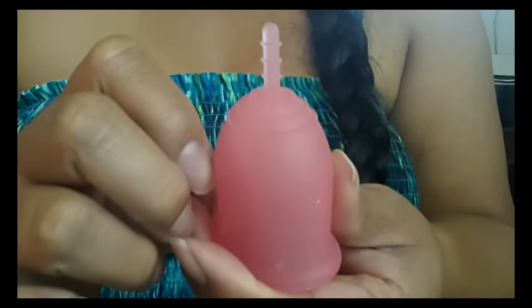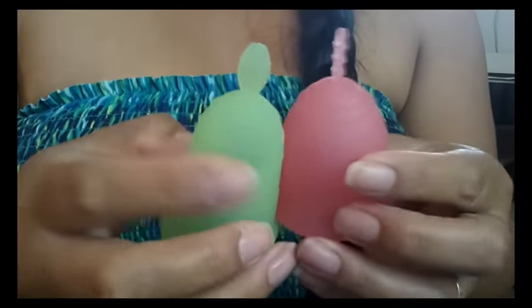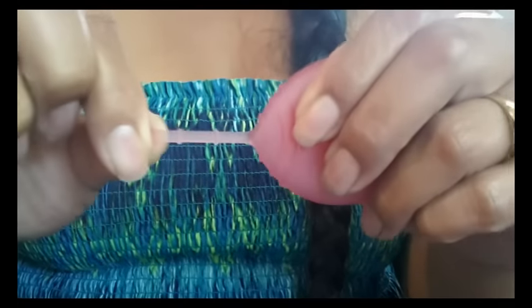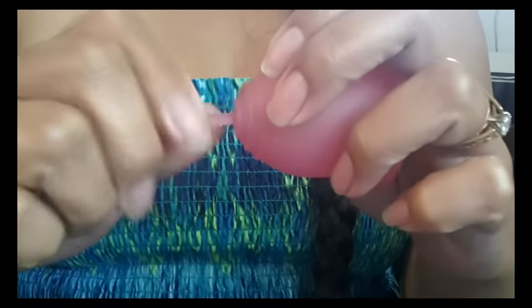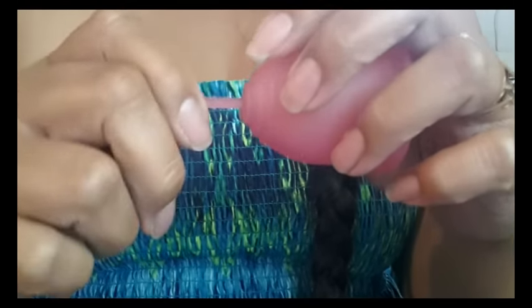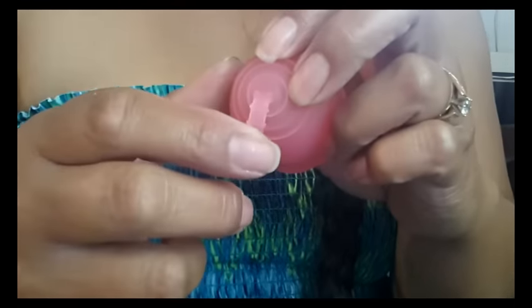It's a stick style stem — I would consider a tab style stem to be something different. It's flat on one side, it does have three grip rings on it and they're raised pretty well. It is nice and stretchy but it's not so stretchy that it continues to exit your body. It's soft even if you pinch down on it the opposite way — some other similar stems are very stiff when you try to pinch them the other way.